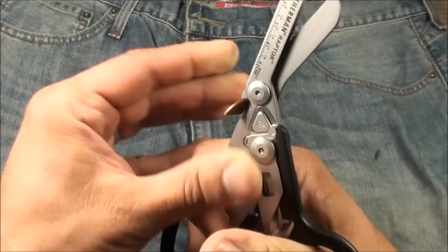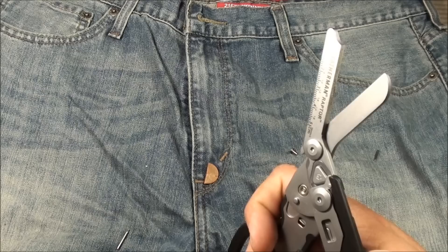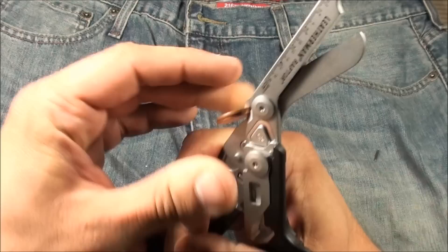So if you were to break your finger, for example, and need to get that ring off as quick as possible, you'd want to put it in the ring cutter portion. Let's do two pennies here and see if I can fit it. As you can see, it's just cutting right through that.